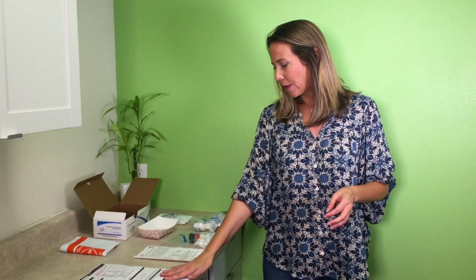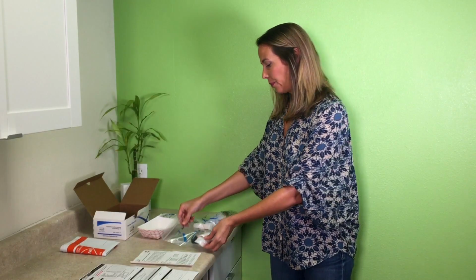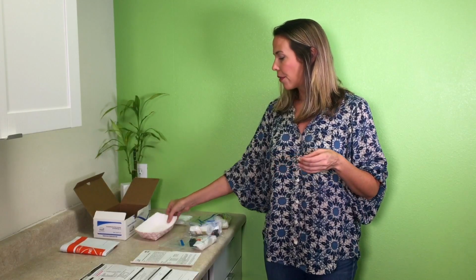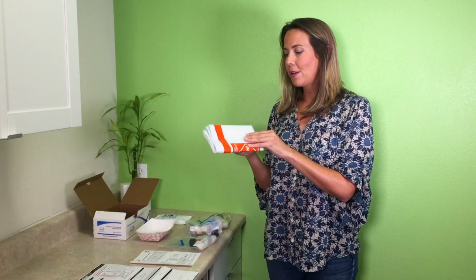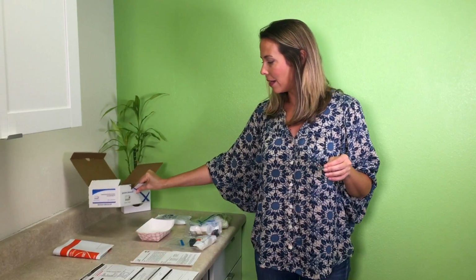So you have your requisition form, you have your instructions, and I'm going to be as thorough as possible, hopefully, but go ahead and read all your instructions. It'll just reiterate everything that I just said, okay? Then you're going to find a day 1 Ziploc, your day 2 Ziplocs, your day 3 Ziploc, 3 collection containers, your polar ice pack, your FedEx envelope with a billable stamp, and of course your box that everything came in.